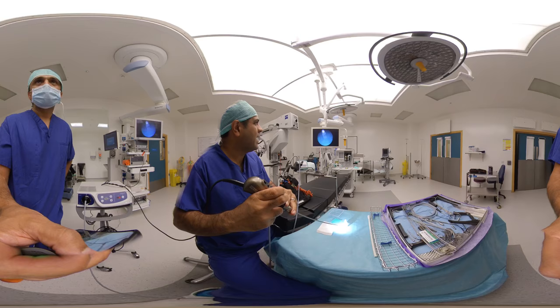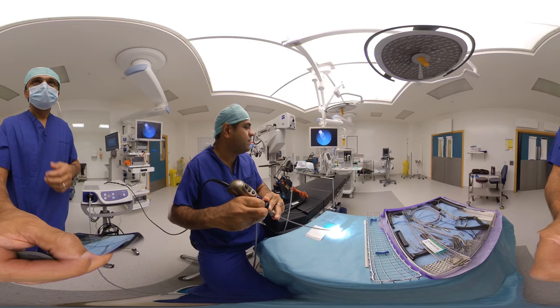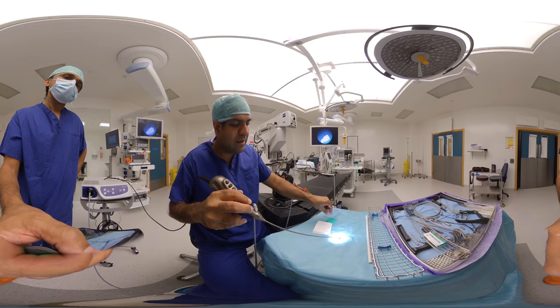You can see there it's going out of focus, and it's going back into focus, and we get a nice focused view beforehand in advance. That's our anti-fog — we'll stick some anti-fog down there, because if we're jetting you just wipe that down.